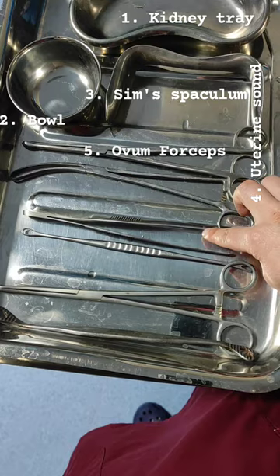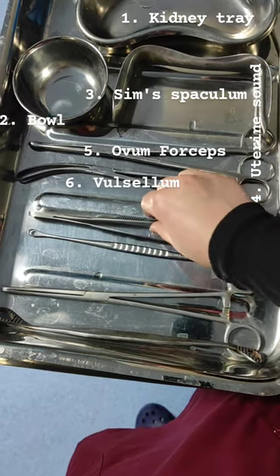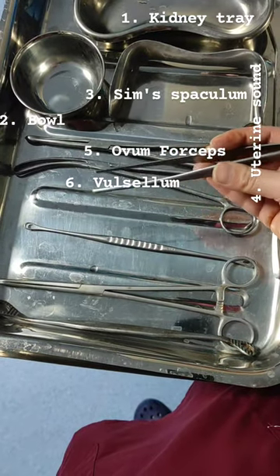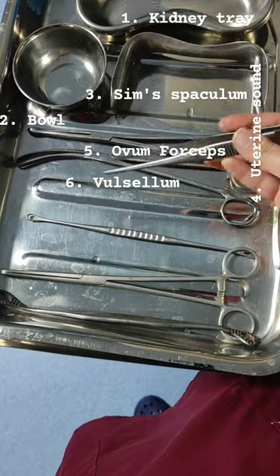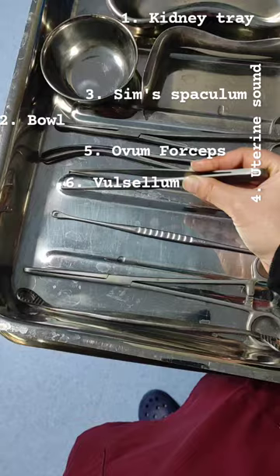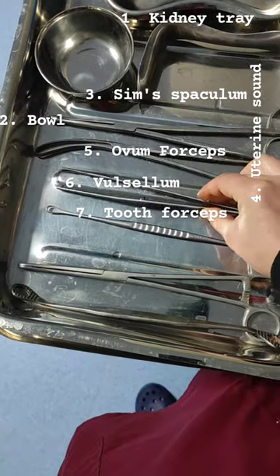Next is the vulsellum, used to hold the anterior lip of the cervix. In a non-pregnant uterus we use the vulsellum, and in a pregnant uterus we use the sponge holder. Next is the tooth forcep, used to collect tissue from the evacuated product for sample purposes.